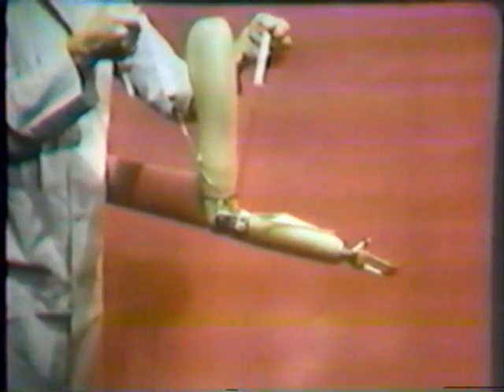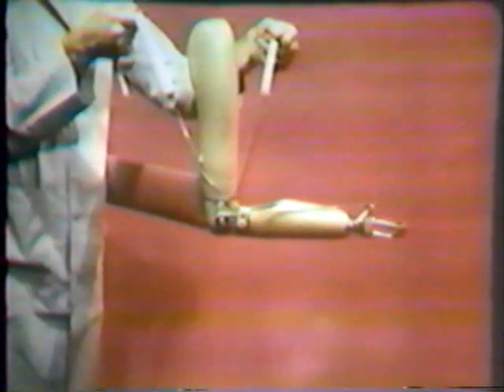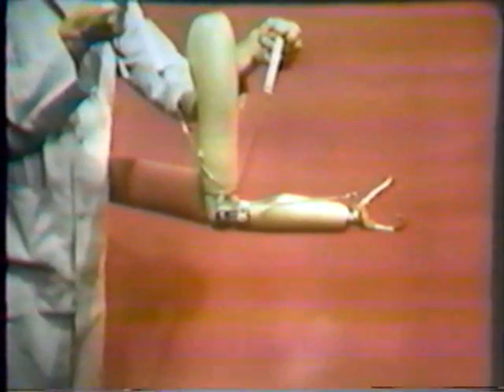A separate control cable is used to lock and unlock the prosthetic elbow. The standard above-elbow unit, as seen in this cutaway model, allows the amputee to lock the elbow in any of 11 positions of elbow flexion. The lock works on an alternator principle: pull and release to lock; pull and release to unlock. One complete cycle is necessary for locking and one complete cycle for unlocking. Three-quarters-inch excursion and a force of approximately two pounds is necessary to cycle the elbow unit.